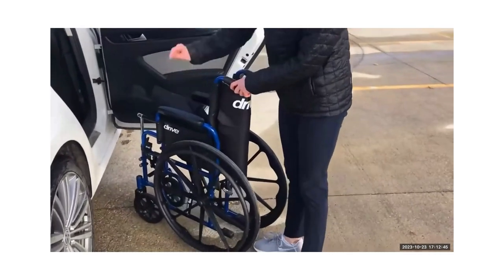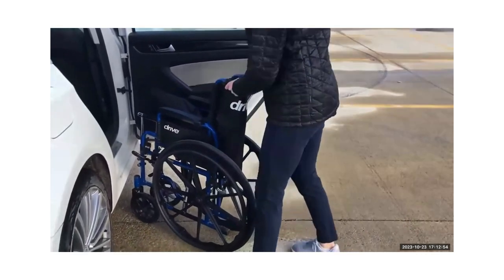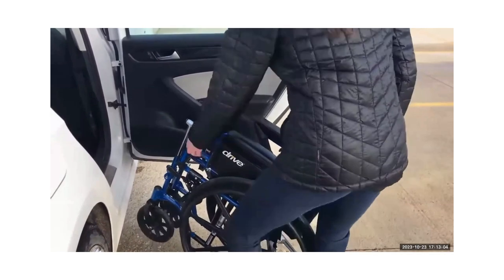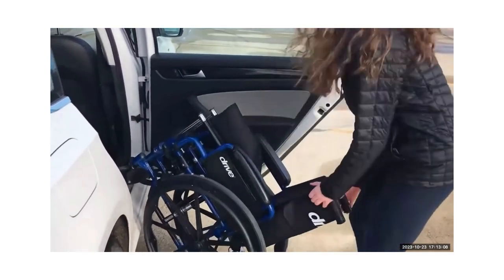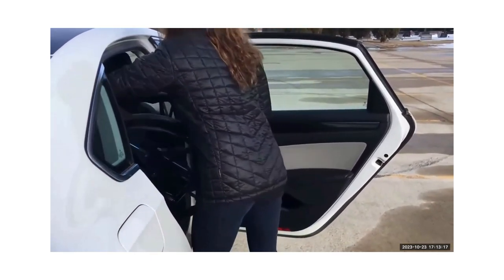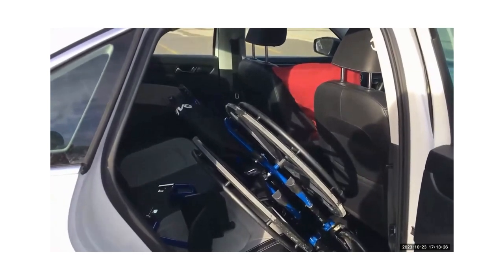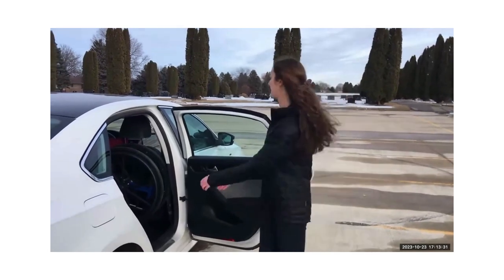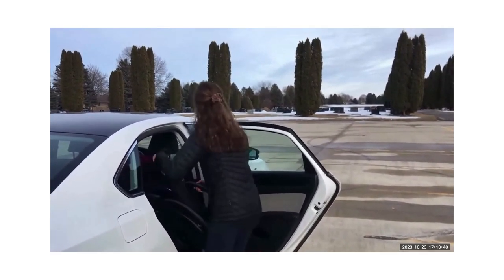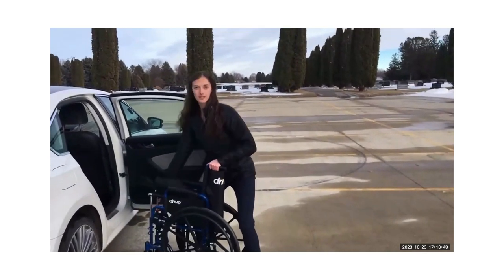A crucial step is to put your brakes on, because if you grab the wheels you don't want them moving on you. Get the wheelchair nice and close, then grab an anchored part of the wheelchair — you can tilt it back by grabbing onto the handles. Tilt it up, grab the back of the wheel, and nicely slide it in. To unload, grab the back wheels and tilt the wheelchair at an angle so you don't hit the top of the car, tilting it all the way back until it's touching the ground. Then ease it back down.